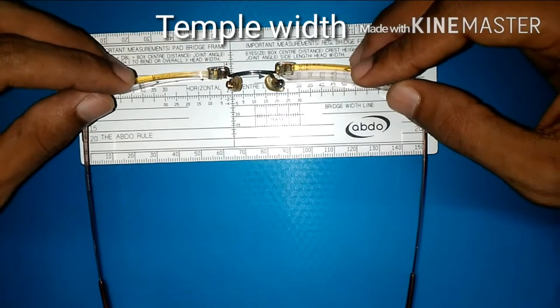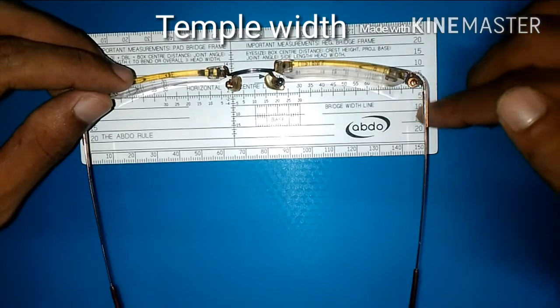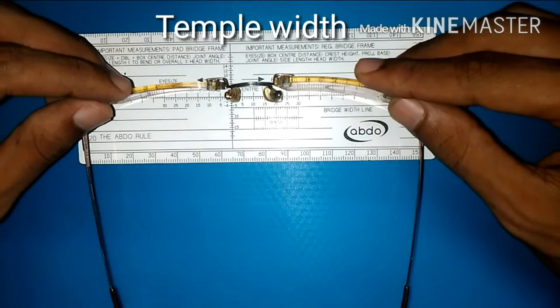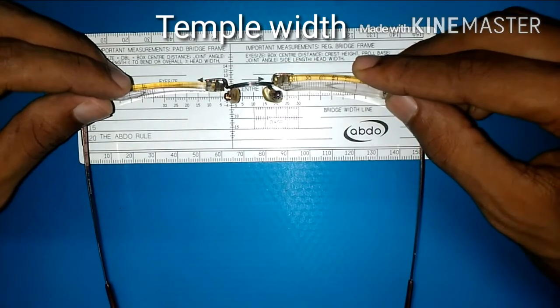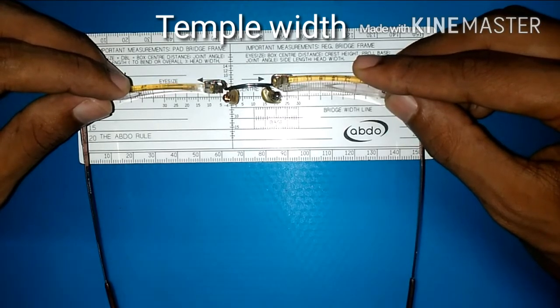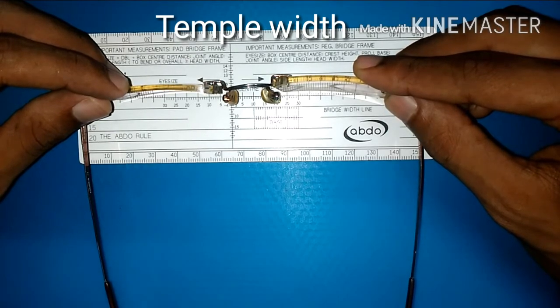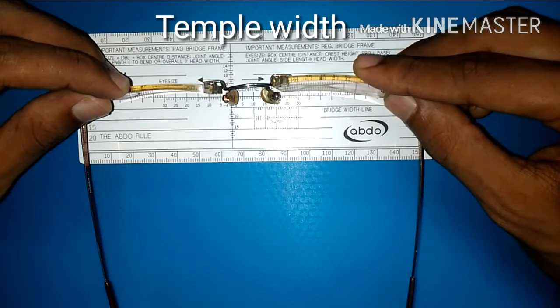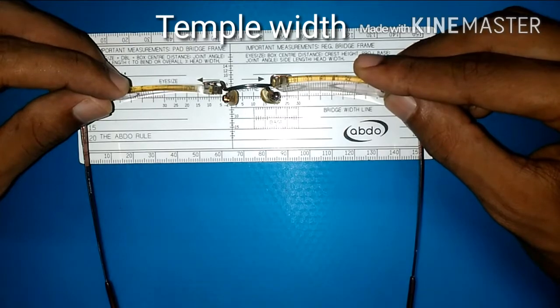Temple width is the maximum distance measured 25mm behind the front of the frame. To measure that, place the front of the frame along the horizontal line; the line is about 25mm below, so it will measure the temple width at 25mm. For this frame it's around 148mm, measured by placing one end at zero and reading the other end.